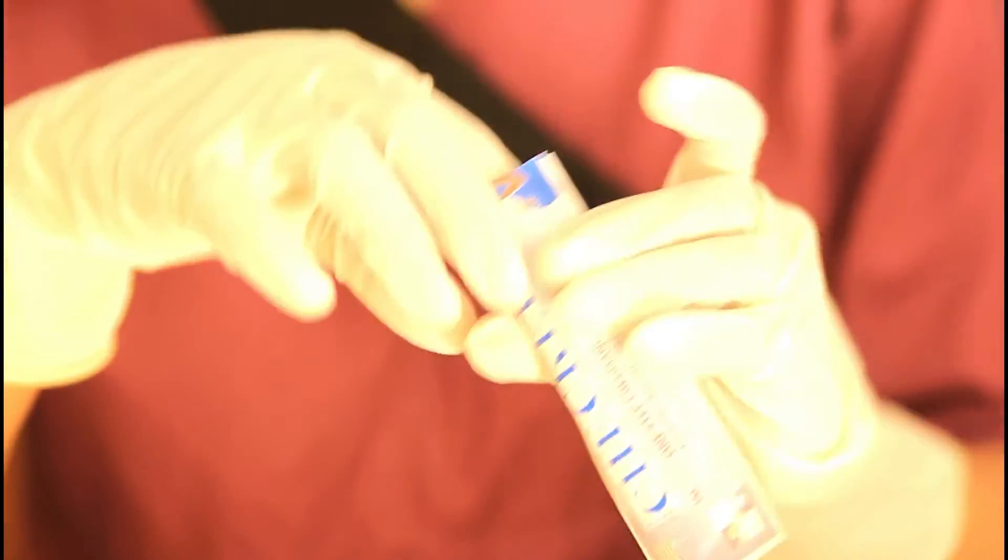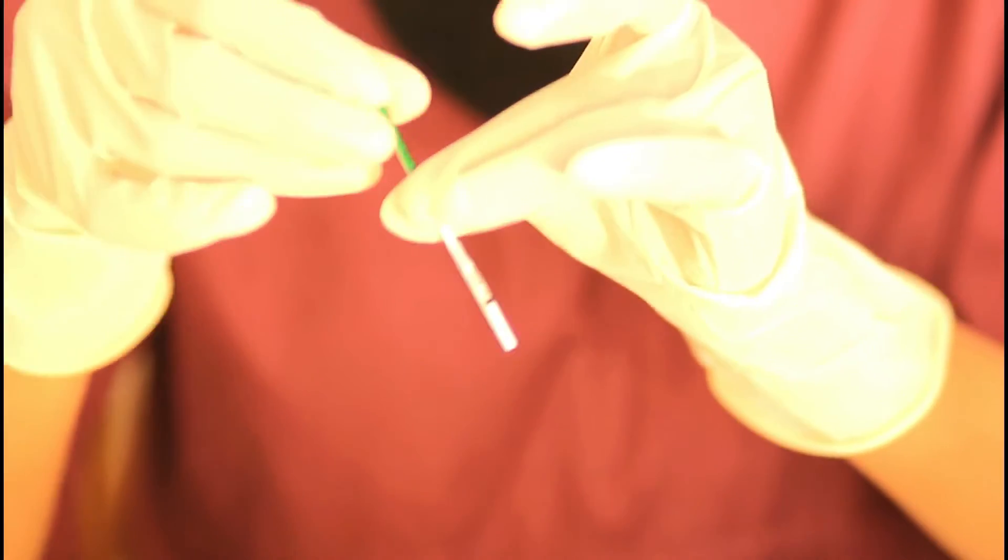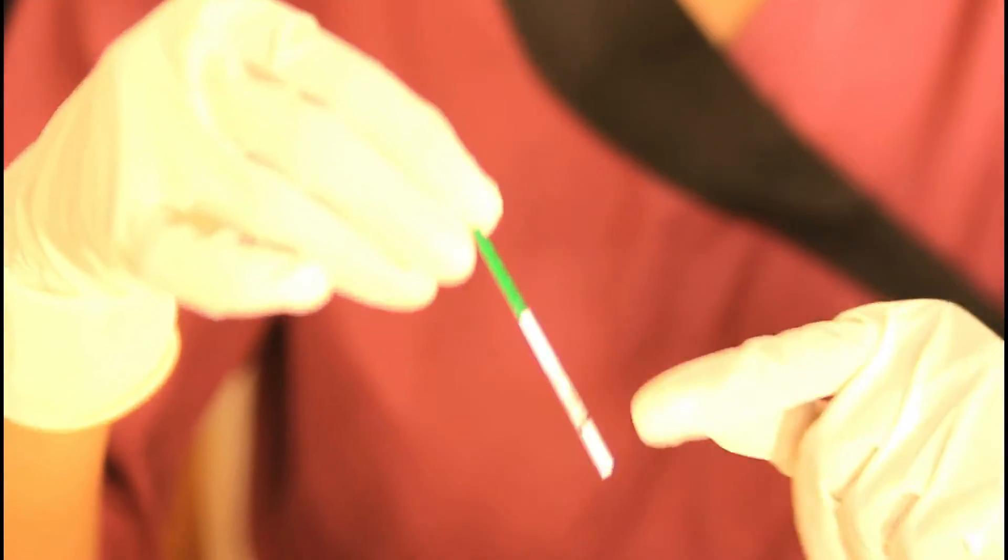For this particular test strip we are instructed to wait for three to five minutes, and they gave us a mark here which tells us the maximum.